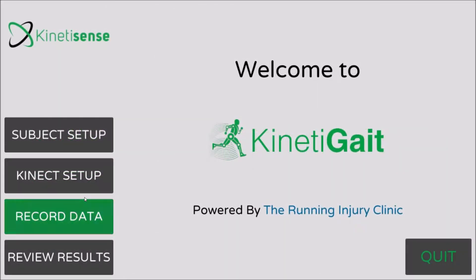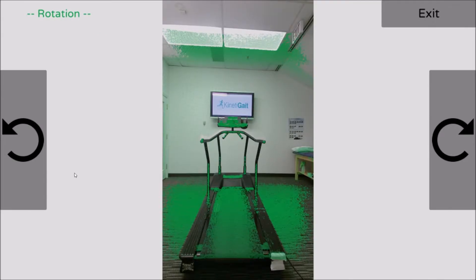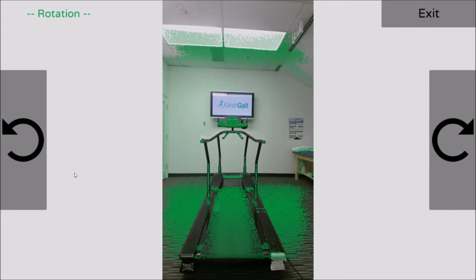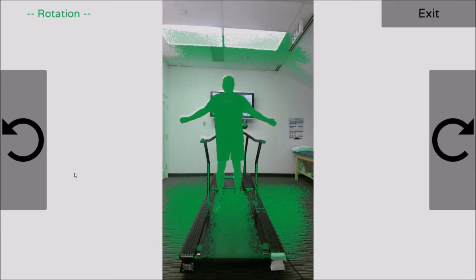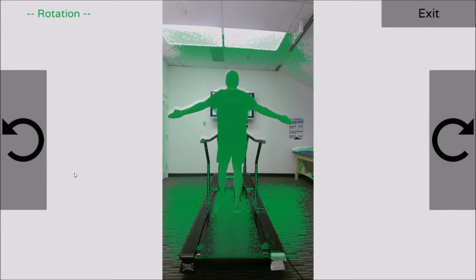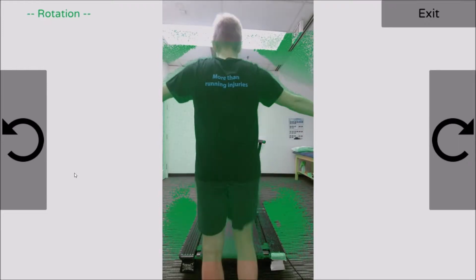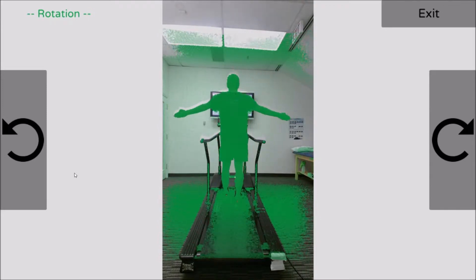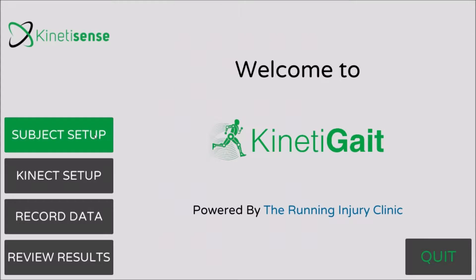For first-time users, select Kinect Setup. Ensure the view is properly oriented with the treadmill centered in the frame. Have a subject stand in the middle of the treadmill. If the camera is positioned appropriately, they will appear as a solid green silhouette. A faded silhouette indicates the camera is positioned either too close or too far away from the treadmill. Adjust the camera placement if necessary.